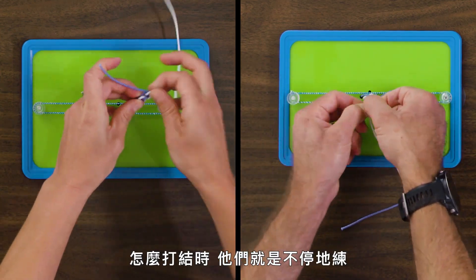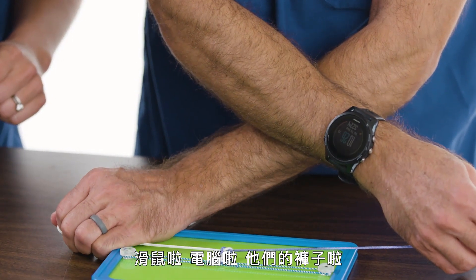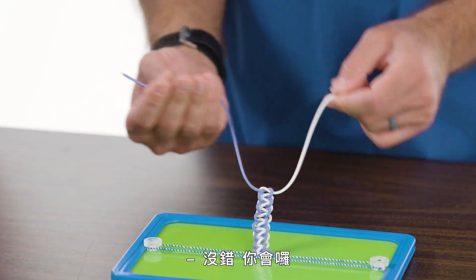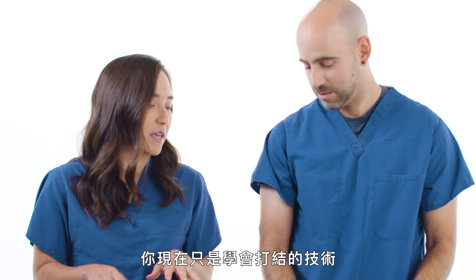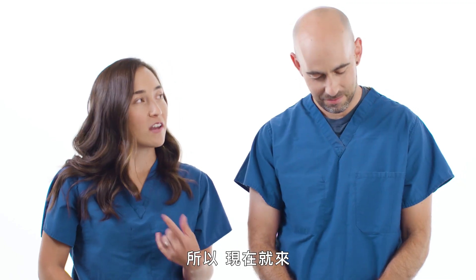When we teach medical students how to do this, they're just doing it constantly — you can find little strings tied to everything: the mouse, the computer, their pants. Now what happens when the ends start getting short? Then you're done. This is good to learn the mechanics of the knots, but this doesn't sit like real suture. So let's move on to something more difficult.